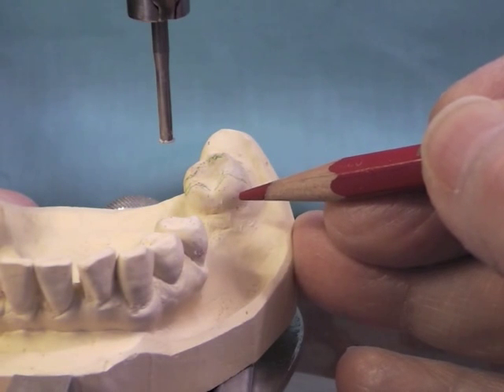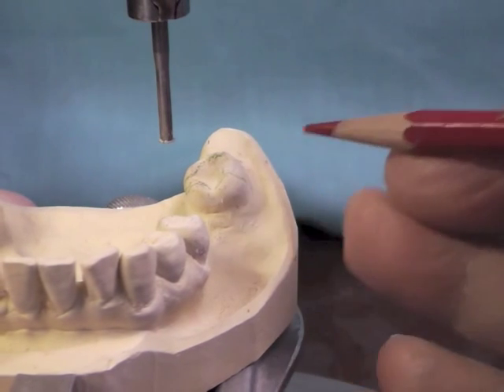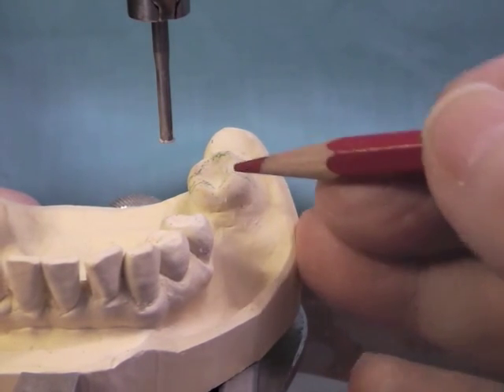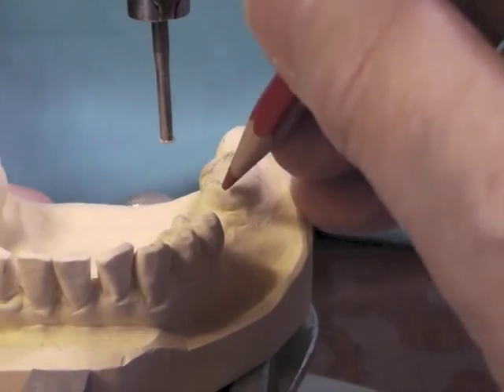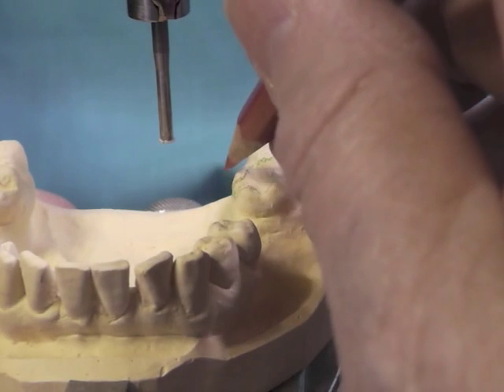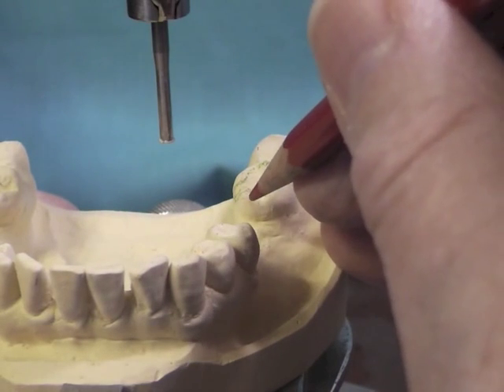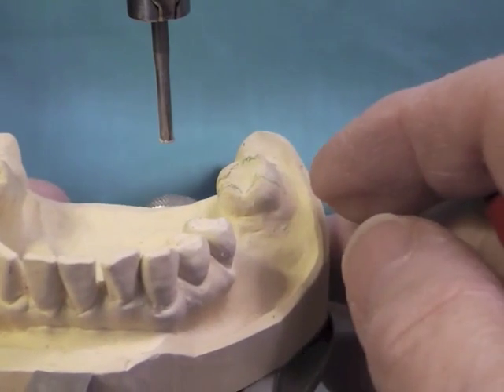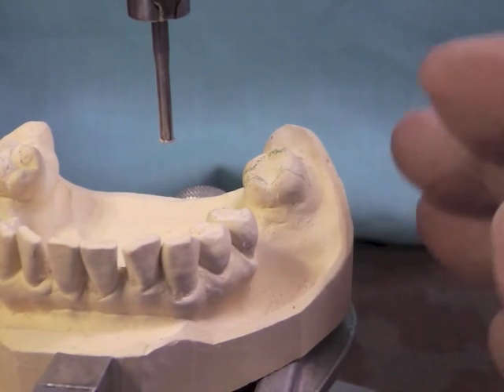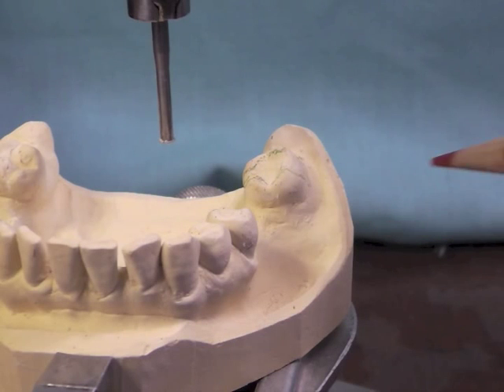Because if you wanted buccal retention, you're trying to actually bring that crown out so that it has an undercut, which it has none at this point in time on the buccal. So you have to think about reduction of tooth. Whereas on the lingual, depending on how far it leans to the lingual, if you're trying to make a crown with the reciprocal component all above your survey line on the lingual, you might have to significantly reduce that surface. So those things have to be considered at the time you decide your design and when you decide whether or not you're going to be crowning a tooth.